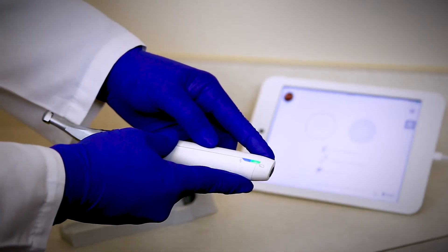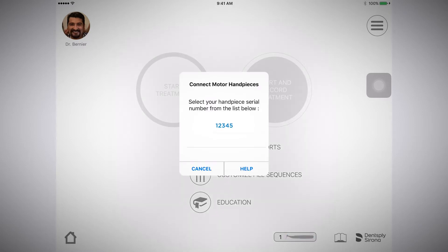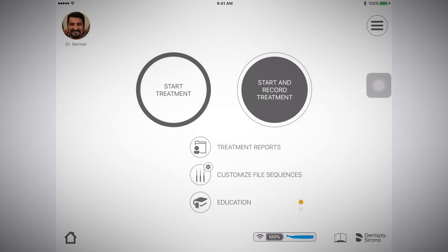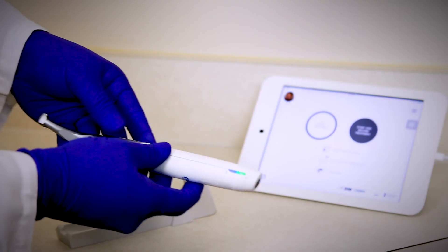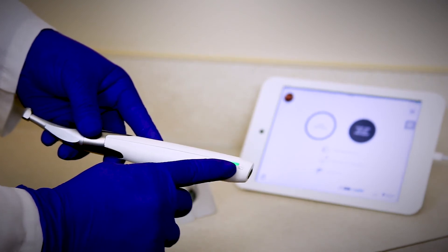To do this, press the multi-function button on the motor handpiece. A serial number will appear as a pop-up on the app. Select the serial number that matches the serial number on the back of the motor handpiece. Once you are connected, a blue handpiece icon will appear in the app and a solid blue light will appear on the motor handpiece next to the Bluetooth icon.